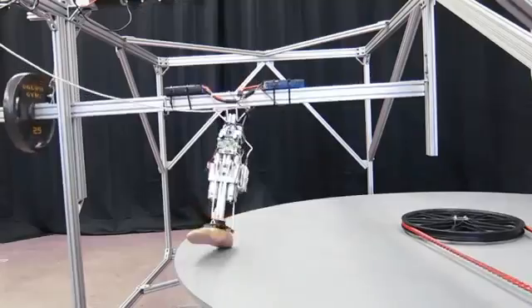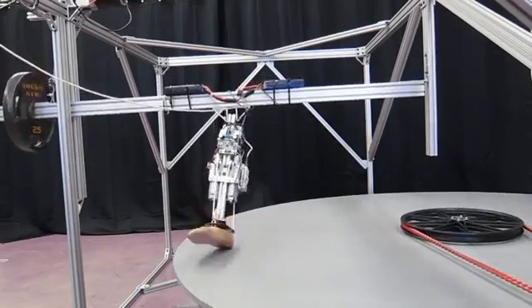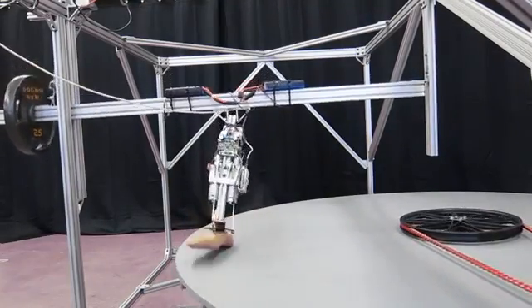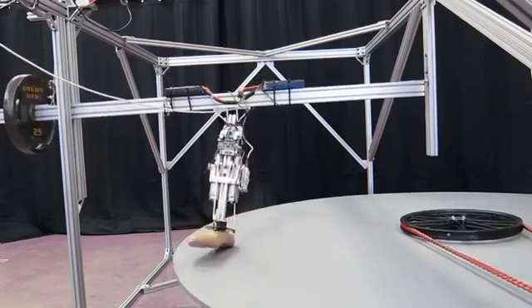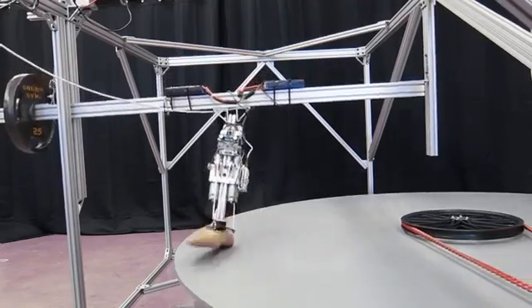In order to be able to evaluate the performance of the robot, we are developing this circular treadmill as an evaluation platform. My research is focused on the design of powered ankle foot prosthesis.